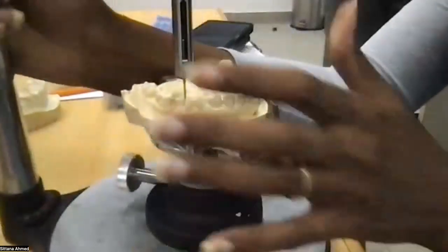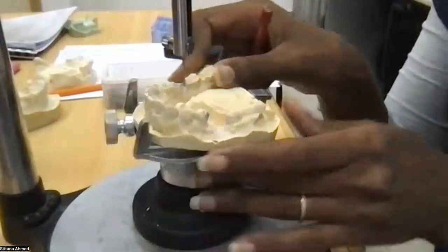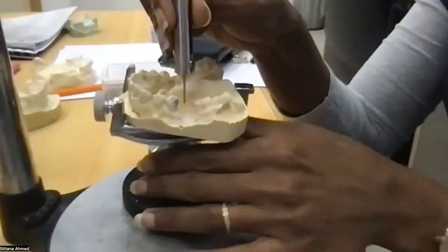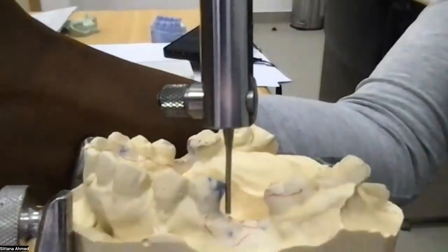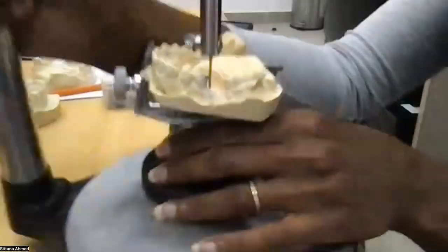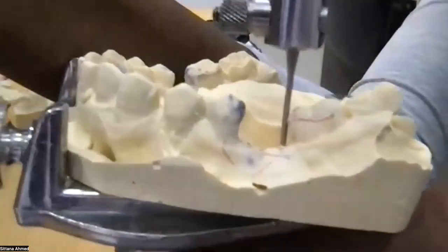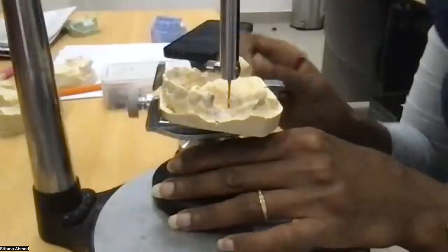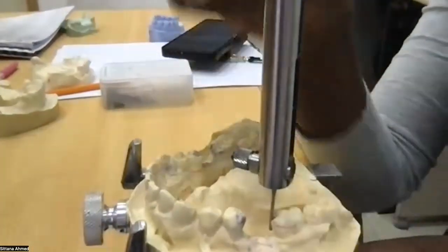Now, on this side, the 2 undercuts are equal, and they are small, and on this side, next to the premolar, the undercut is very big, and next to the molar, the undercut is actually very big too. So if I make a change, look carefully what happened. I'm gonna get it closer.